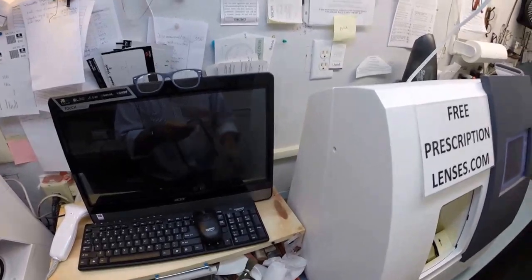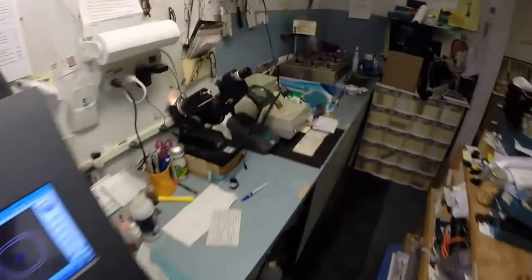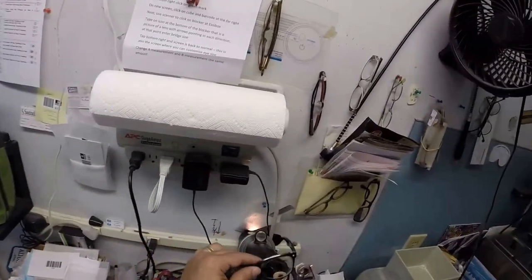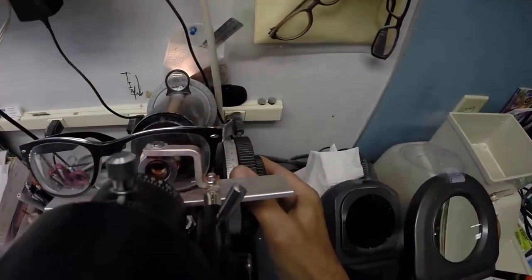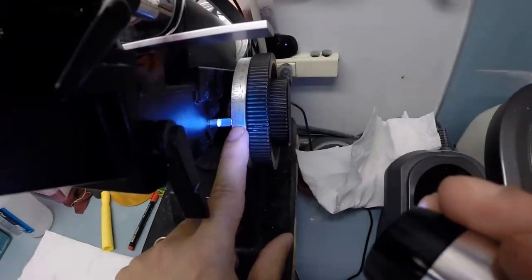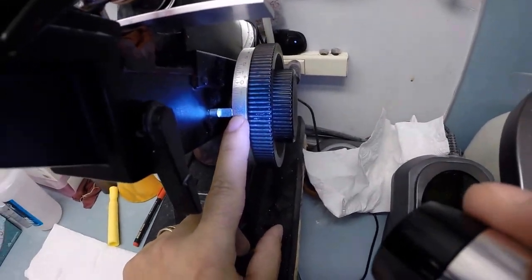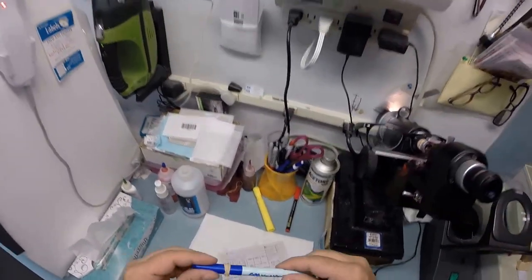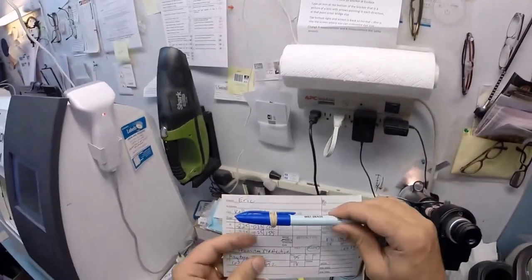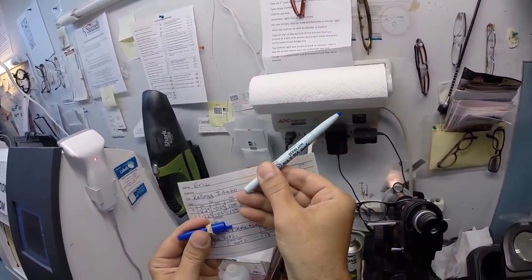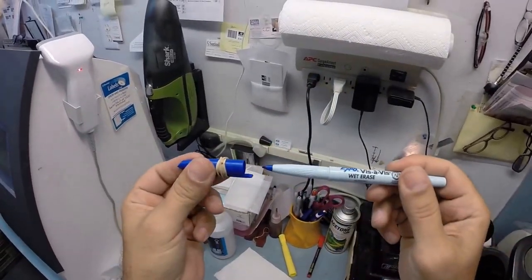I need to spin that fine-tune knob to 155. Put your left lens in over that red dot which again is your optical center. I'm getting a reading of minus 2.25. I'm gonna check your astigmatism correction of one step and what do you know, we're at 2.50 again. So that is made perfectly. I couldn't have made that better if I made it myself. Remember we're gonna turn that knob to 155. This blue tip, let's take that off. Starting at 0, 90, and to 155 we turn that knob.